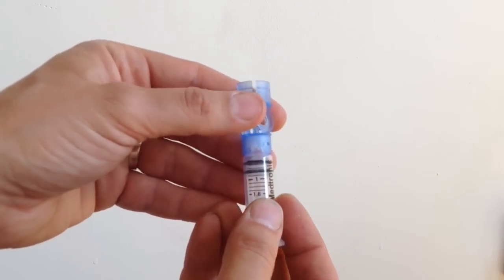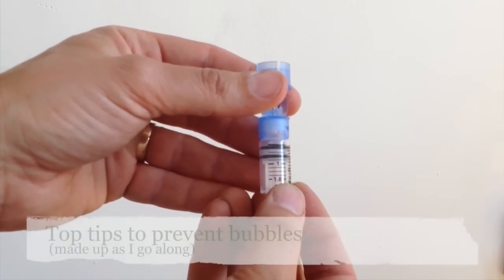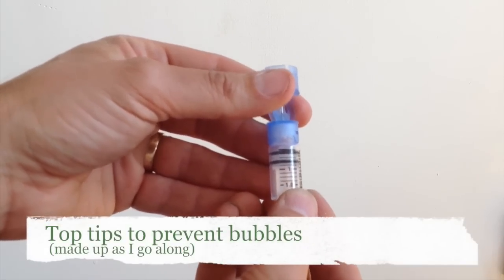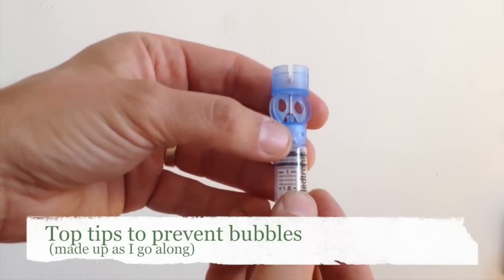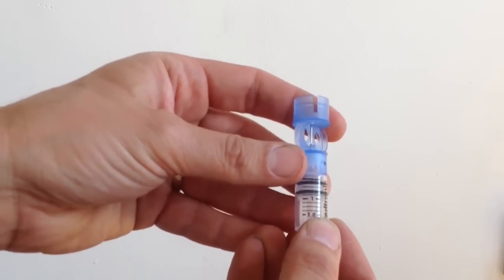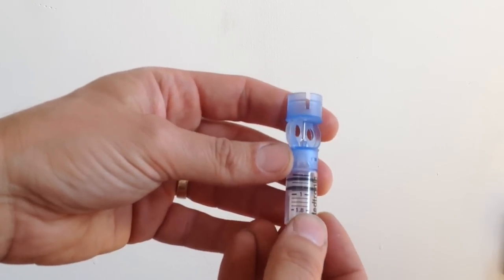Now, I try my best to not get bubbles in the reservoir. I think everyone does. So I'm just going to go through my way of trying to avoid those. I don't suggest this is the right way, but this is just what I do.